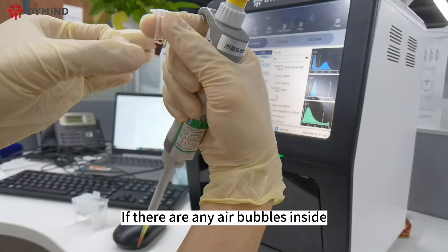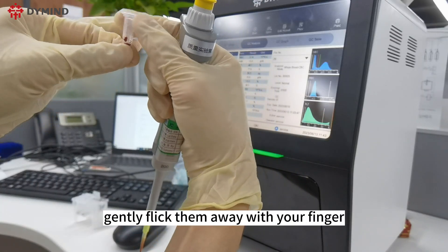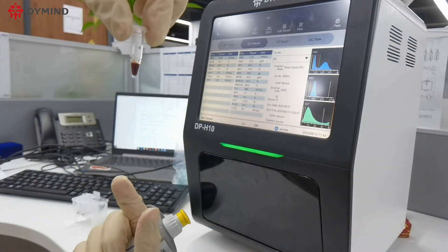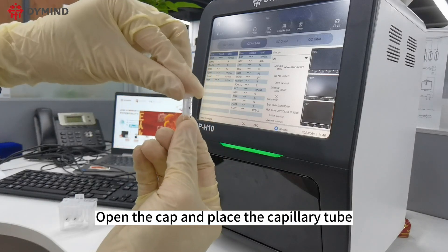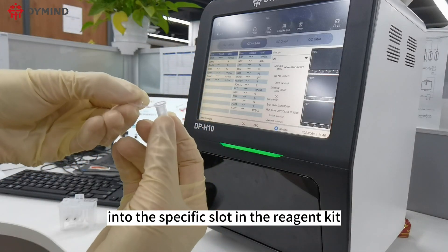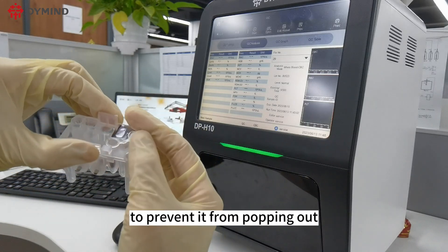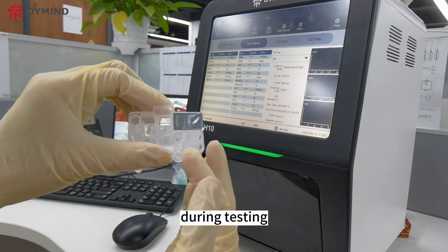If there are any air bubbles inside, gently flick them away with your finger, avoiding excessive force to prevent liquid loss. Open the cap and place the capillary tube into the specific slot in the reagent kit, then secure the lid and the latch to prevent it from popping out and affecting sample aspiration during testing.